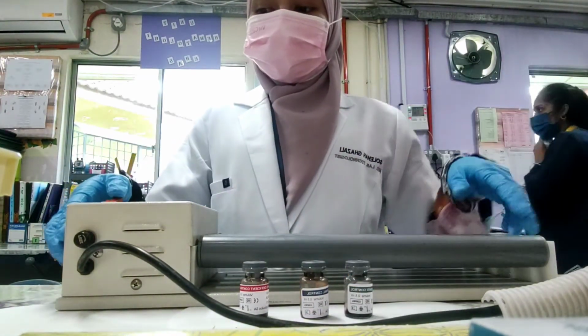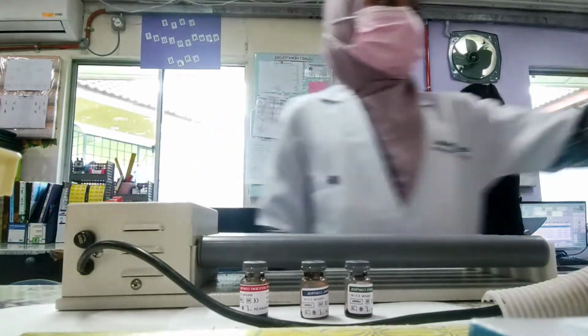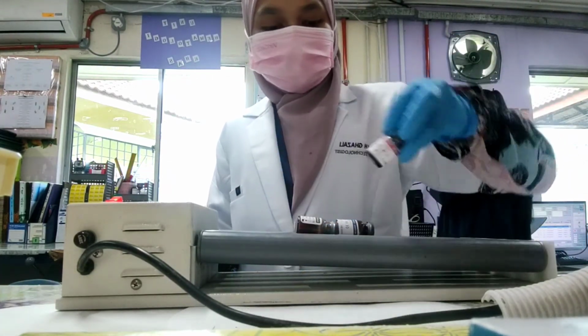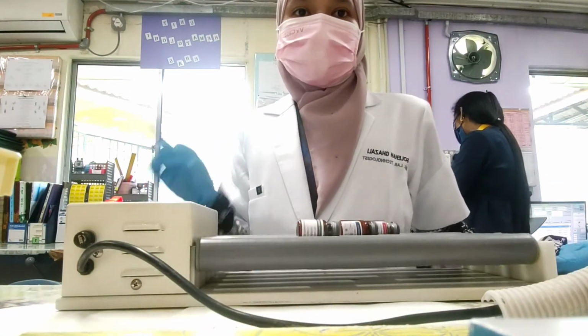We need to use the lab roller mixer for about 1 hour.